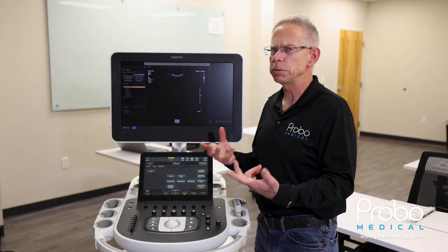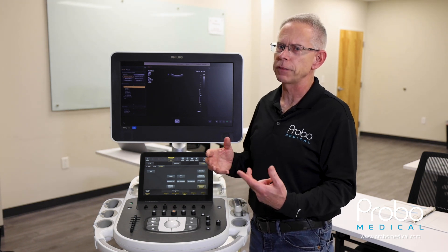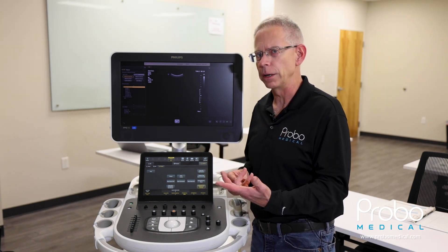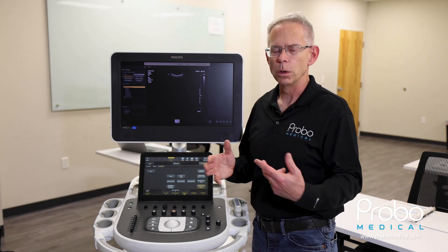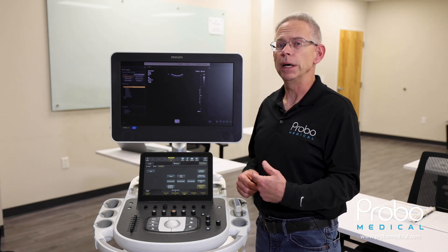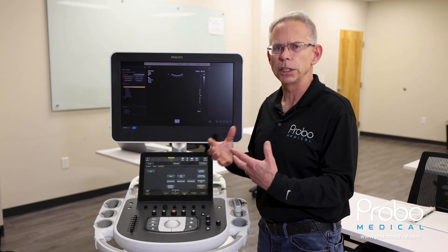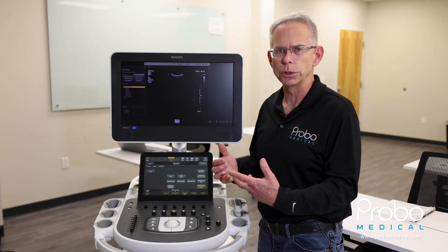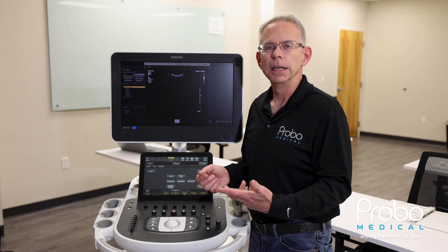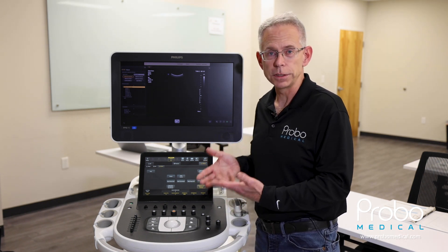So the reason you might want to do this is your machine's probably having some significant issues, something where you're thinking you're going to need a software load or something like that. But you can go in and run these utilities — they're much like any computer utility that you could run on a hard drive. It's just able to run them on the ultrasound system.